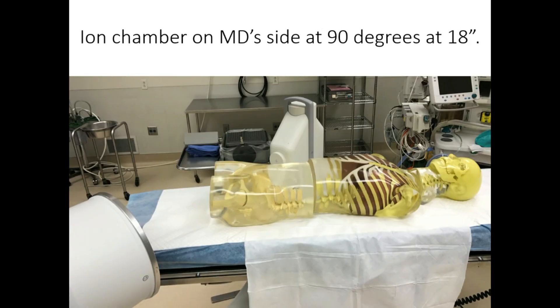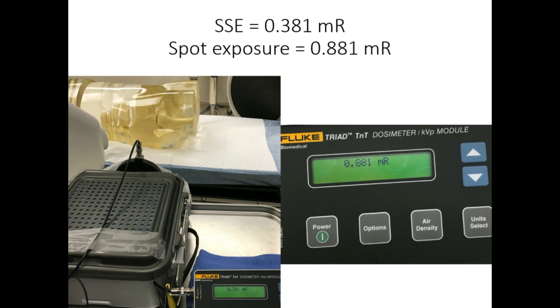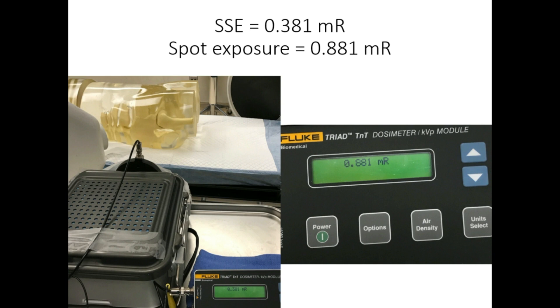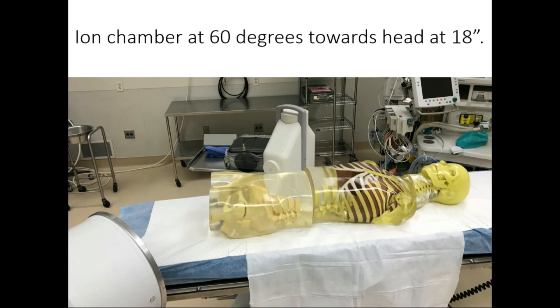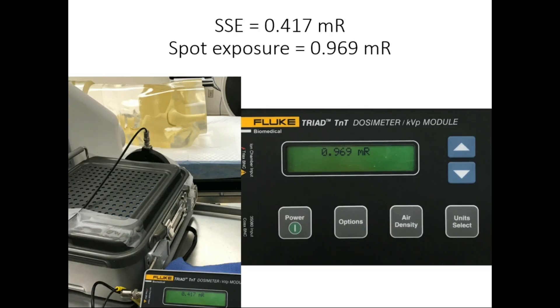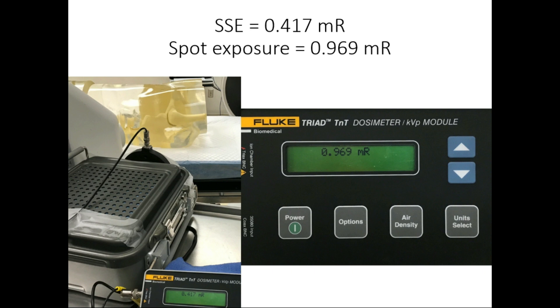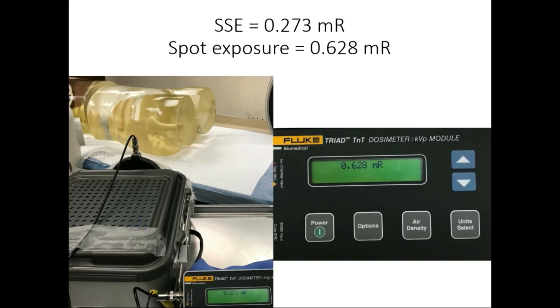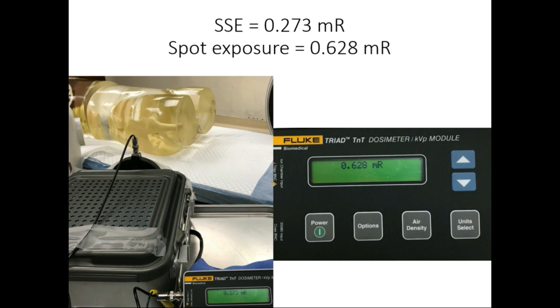Now we have the ion chamber on the surgeon's side of the table at 90 degrees at 18 inches. The SSE is 0.381 milli R and the spot exposure is 0.881 milli R — so we're talking milli R now, not micro R. Moving the ion chamber up towards the head at 60 degrees, the SSE is 0.417 milli R and the spot exposure is 0.969 milli R. Moving it down to 60 degrees towards the feet, the SSE is 0.273 milli R and the spot exposure is 0.628 milli R.